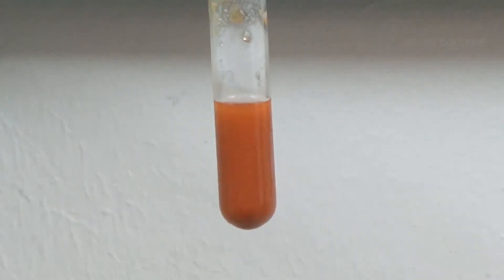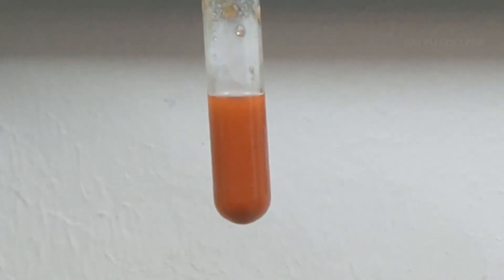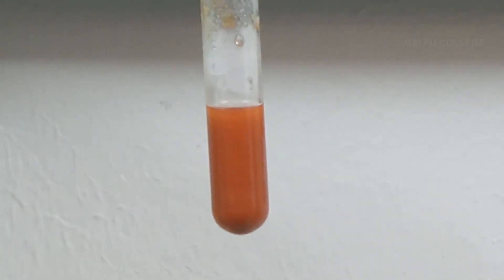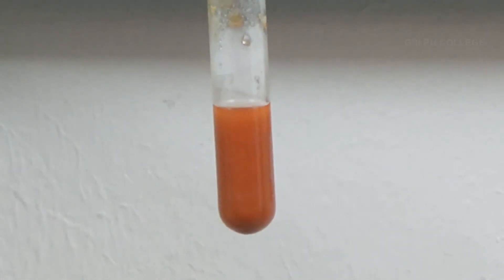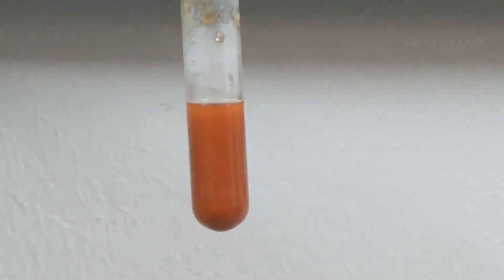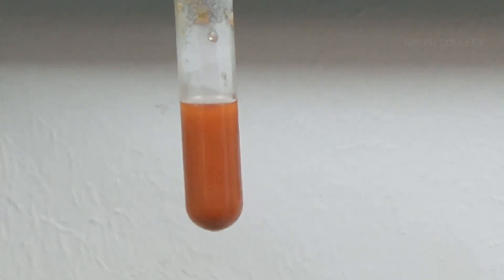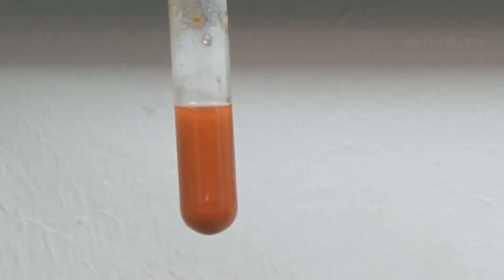While heating, based on the change in colour, the percentage of sugar is indicated: green represents 0.5%, yellow represents 1%, orange represents 1.5%, and brick red colour indicates the presence of more than 2% sugar in the urine sample.